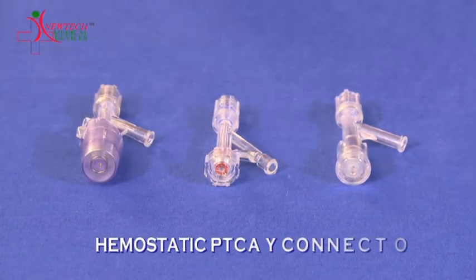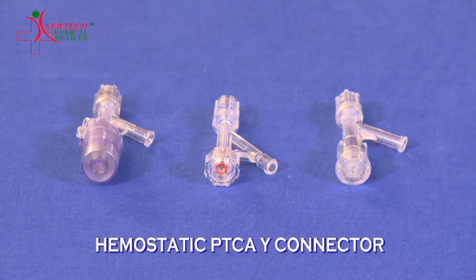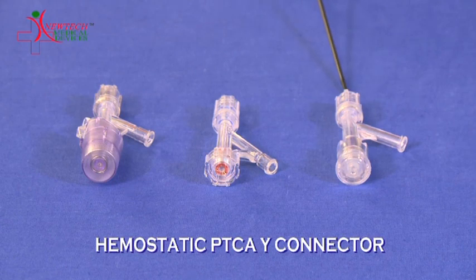To avoid blood loss during the PTCA procedure, we provide three types of PTCA wire connectors: push-pull, screw type, and push-click hemostatic PTCA wire connectors.